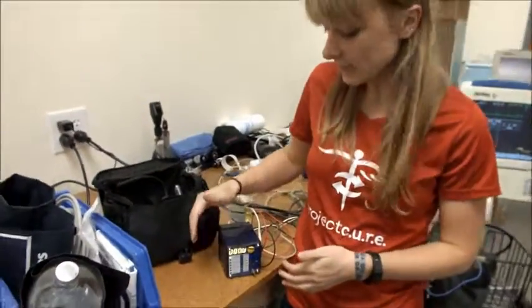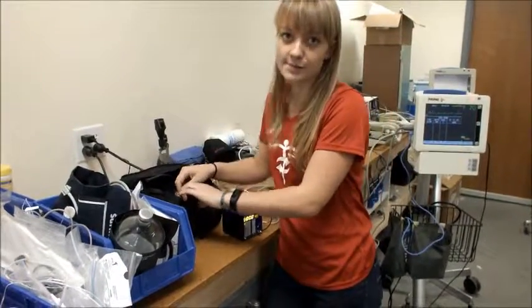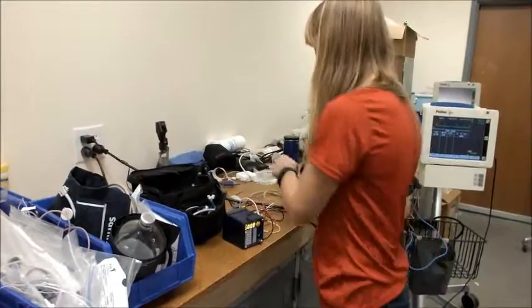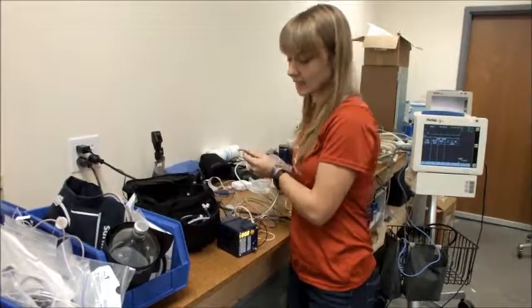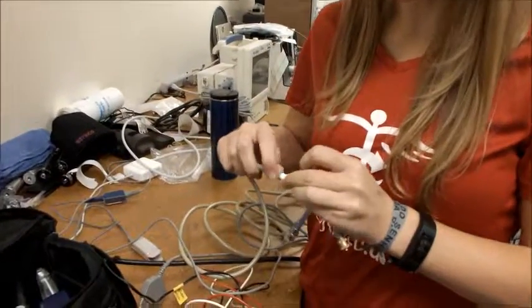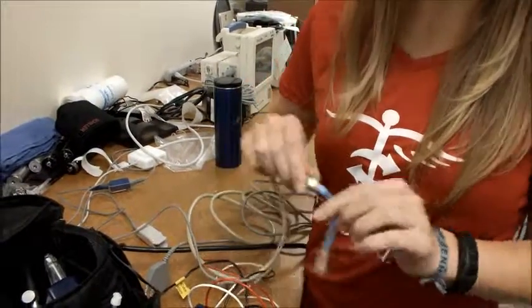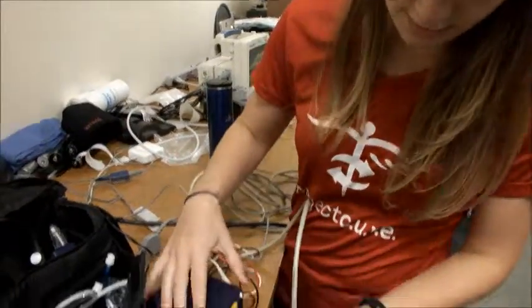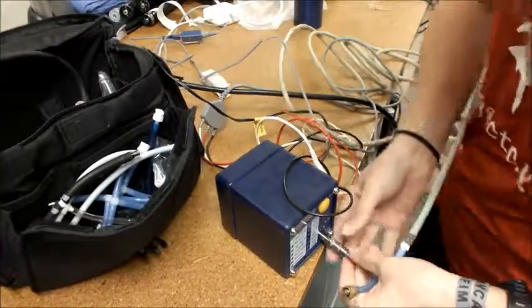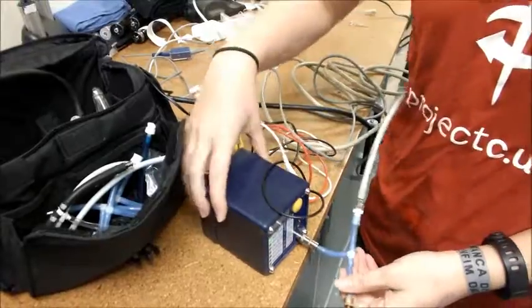Next, you're going to need to attach the SimCube to the blood pressure mechanism on your EKG machine, and that's going to require some adapters. Because our cord has a specific connection on this end, we're going to look for a corresponding three-way adapter that will connect to this cord. Once we have the connection, we'll put this part onto the blood pressure component of the SimCube, and make sure it clicks in so that you can't pull it and remove it — otherwise the test won't work.